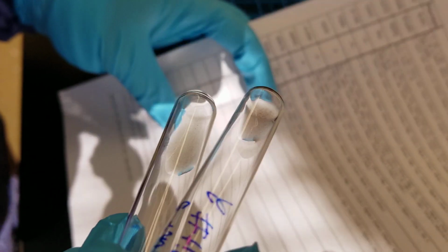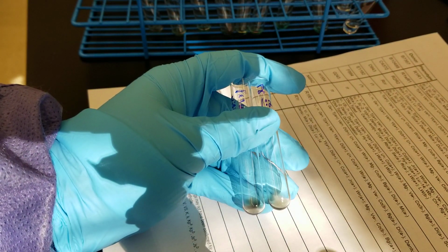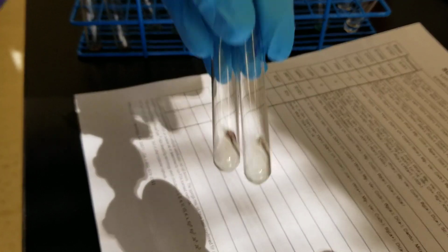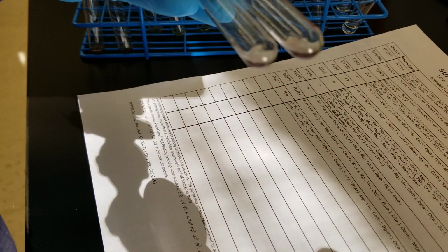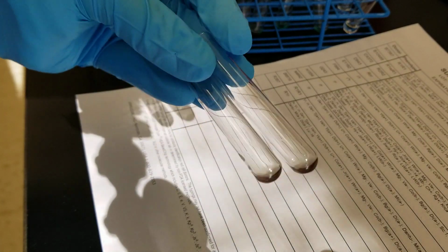So we had in the straight before that it was 1+, but this is looking really tiny. They're both looking weak. So that's interesting. So 1 and 2 are weak. Yeah, I'm definitely not going to call these a 1. They're so small.